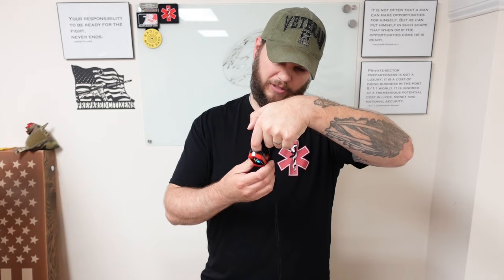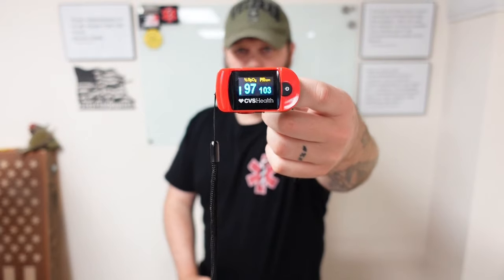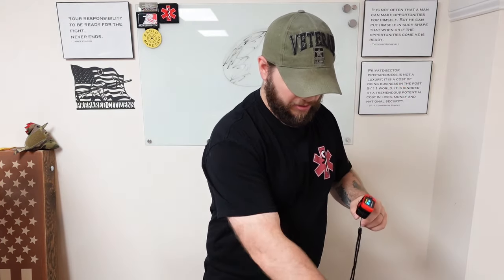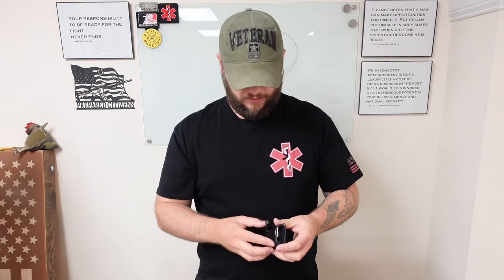The Velcro — I can see needing like a little sleeve or some kind of cover for that. Other than that, it's pretty sleek. So I got this little handy dandy pulse oximeter. We're alive — this shows blood is flowing down this left arm. Let's put this tourniquet on and see what we get.